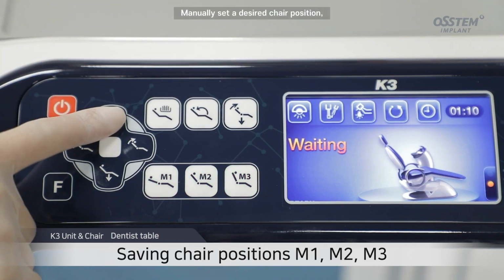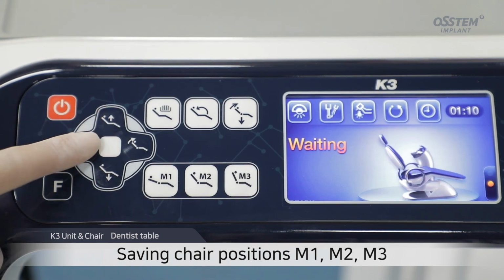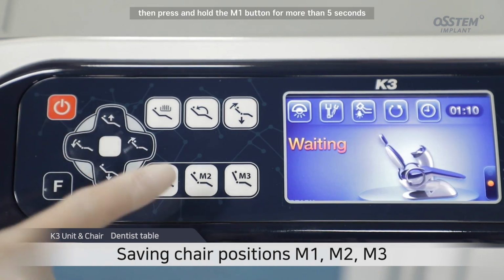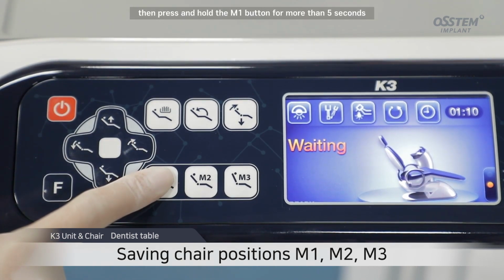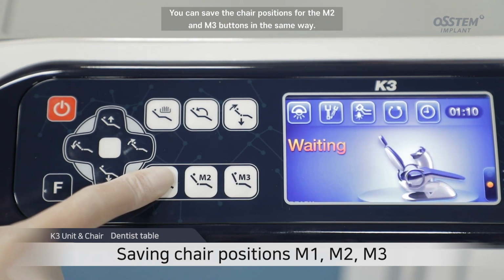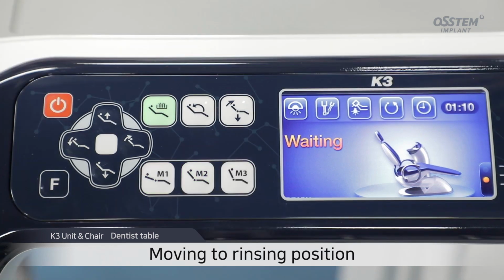Manually set a desired chair position. Then press and hold the M1 button for more than 5 seconds to save the chair position for the M1 button. You can save the chair positions for the M2 and M3 buttons in the same way.